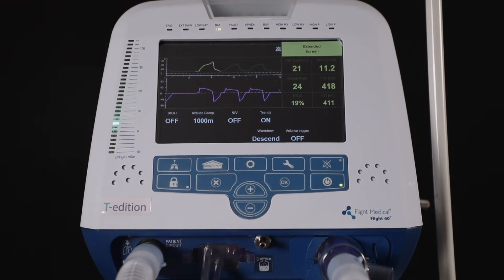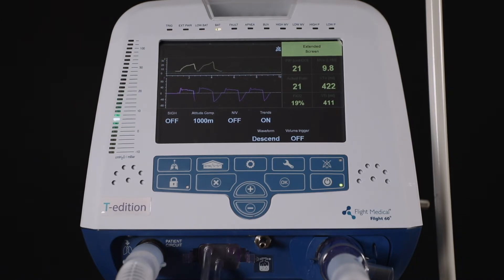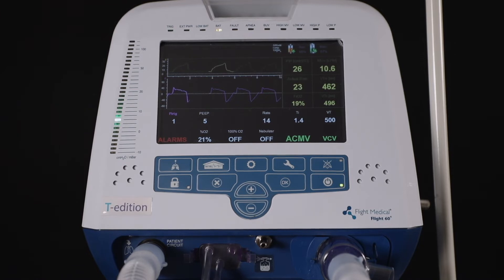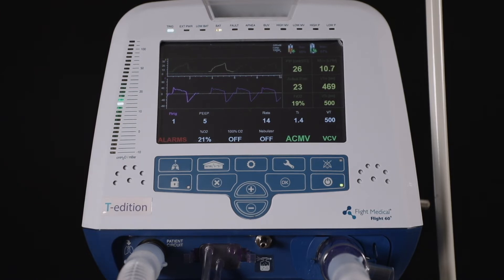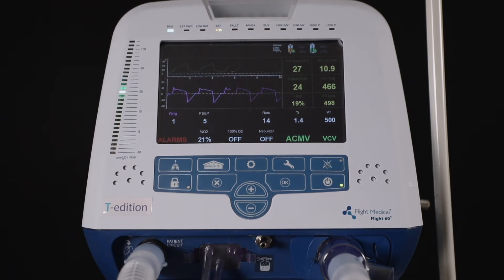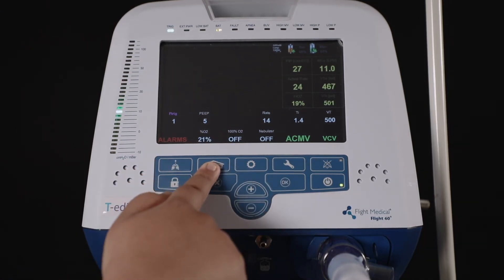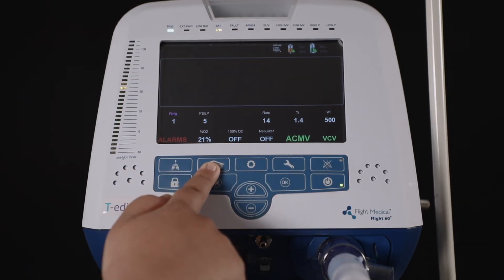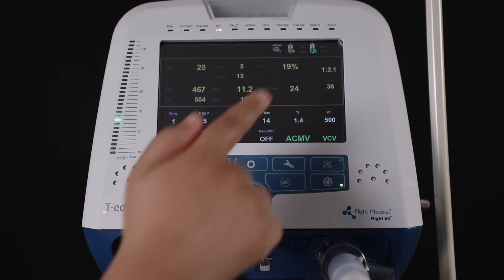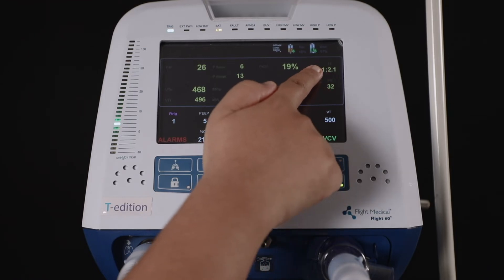Here we set a mandatory volume of 500 ml, so in every timed breath a volume of 500 milliliters will be delivered. To check the IE ratio attained, press the extended screen on the top right — under parameters, the user will find the IE ratio. The IE ratio attained here is 1:2.